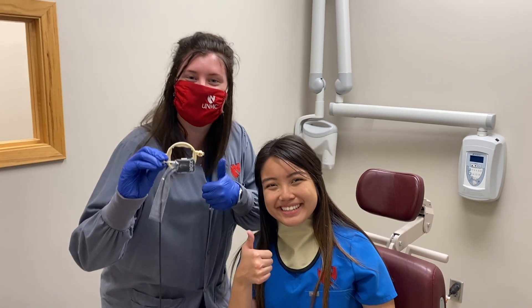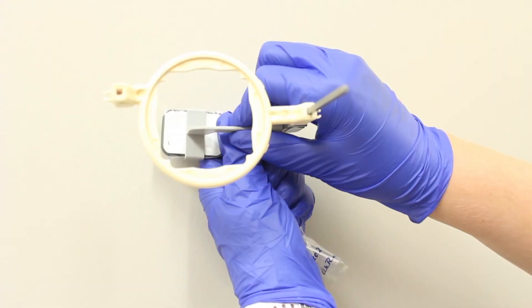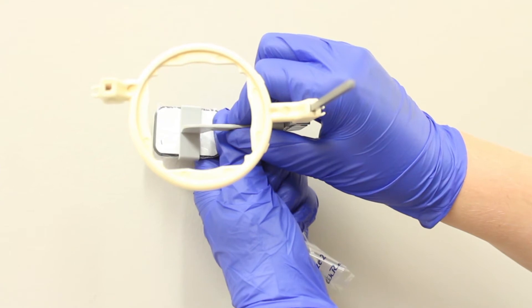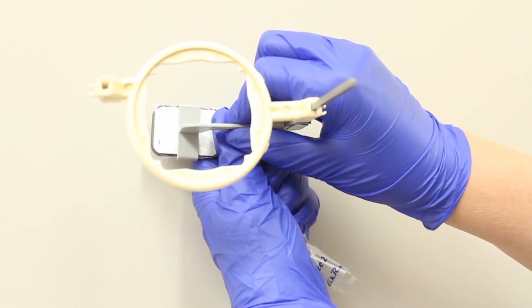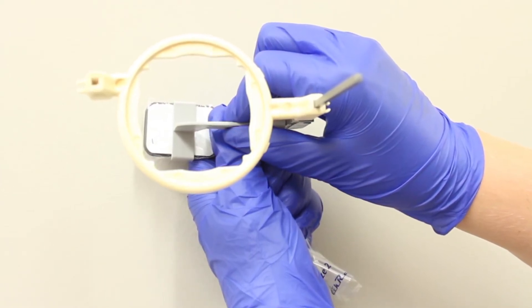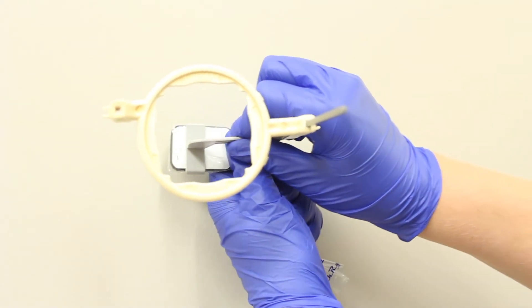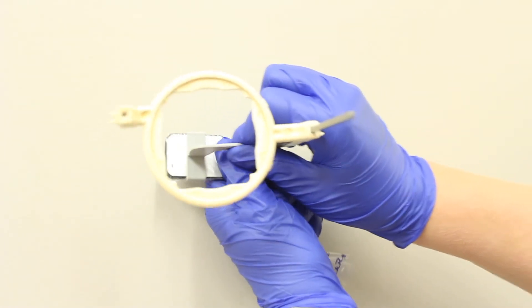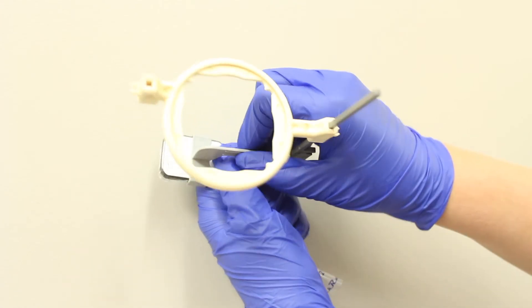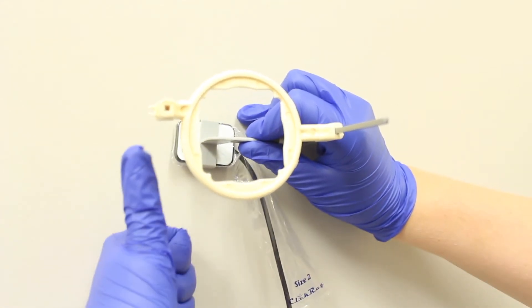Now let's try taking a bite wing. A bite wing is a good way to demonstrate other ways cone cuts can occur. For a bite wing, you would have to switch to a different beam alignment device. As you are changing out the indicator arms and sensor holders, notice that the arms of the sensor holder are loose and can cause the sensor to move while placing it in the mouth. Therefore, this could cause the sensor to not be in line with the aiming ring.